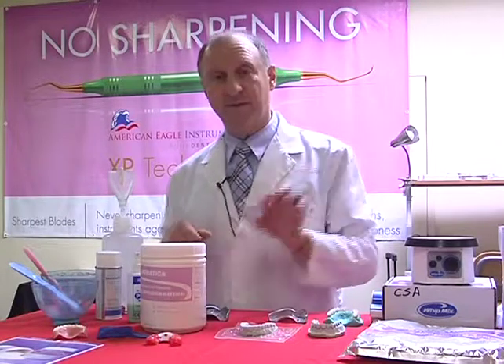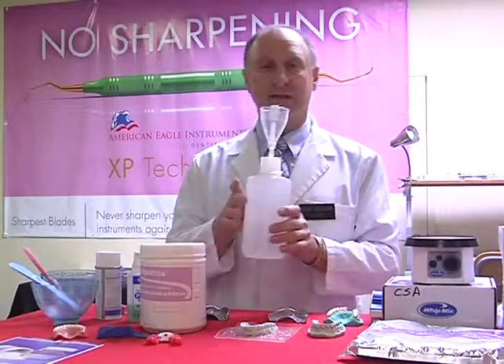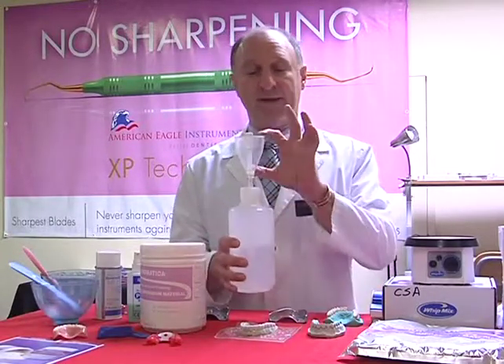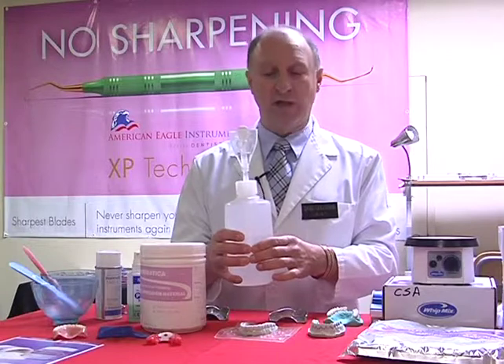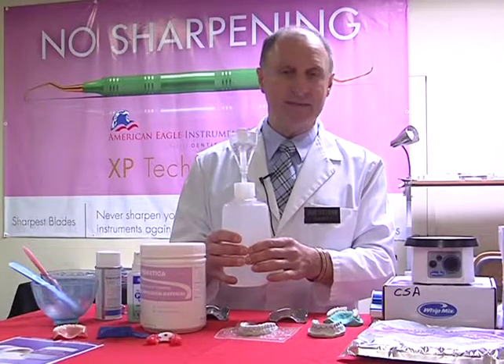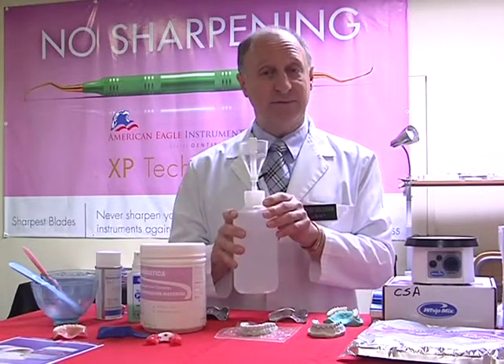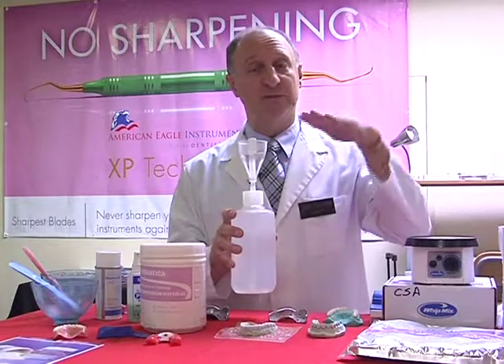So instead of using the preset water measures that come with the material, I've got one of these little gadgets called the H2O dispenser, and this comes from the Maytech manufacturing company in California. Great little idea. There is a holding area for the water, and as I squeeze this with a light pressure, the water is pushed through a straw in the center. As the water comes out of the straw, it comes to this little white cap. I then let go. It then sucks back to the perfect amount of 2 scoops, which is preset. If I want to change it to 3 scoops, I would turn it this way, 1 scoop back the other way, so I can always vary the amount from 1 to 3 scoops.